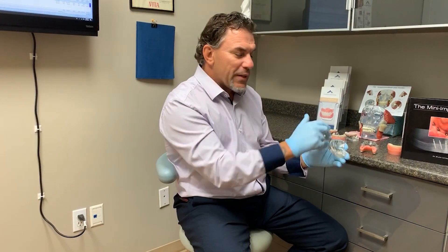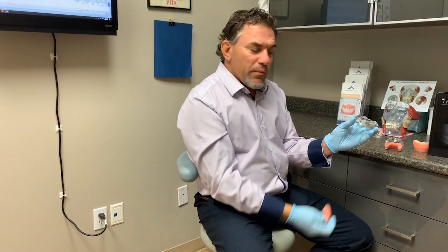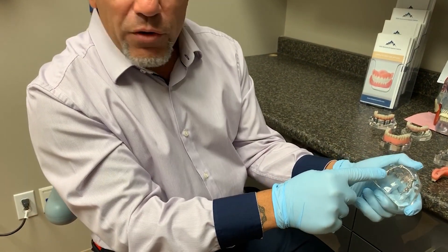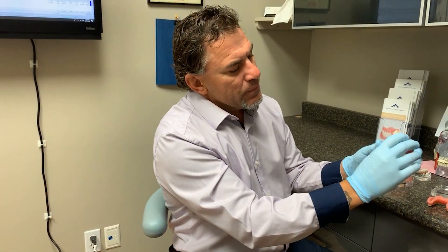My belief is splinting. What I like to do now is a fixed-removable denture that snaps in and comes out every day so the patient can clean it. The implants are placed and go through a healing process. After healing, instead of putting gold attachments on, we take an impression and get a milled bar that attaches to all the implants with screws, tying them together with equally loaded pressure. Inside the denture, it's still a snap housing system — these are yellow ones — different colors represent different retention levels. They anchor to the bar, maintaining the integrity of the implants.